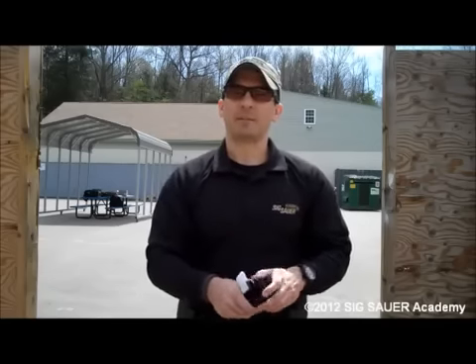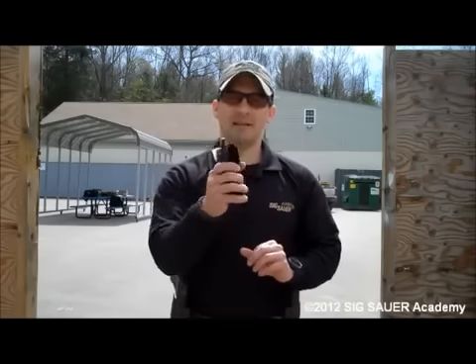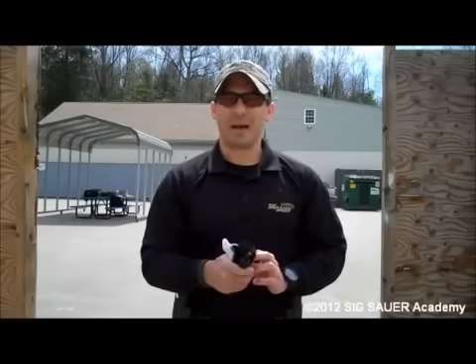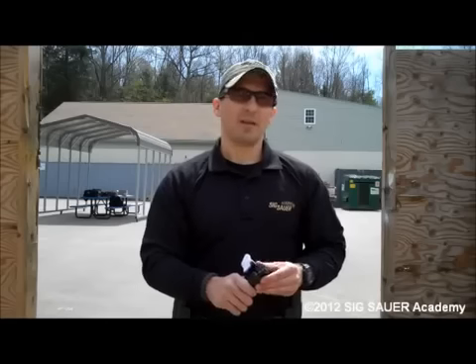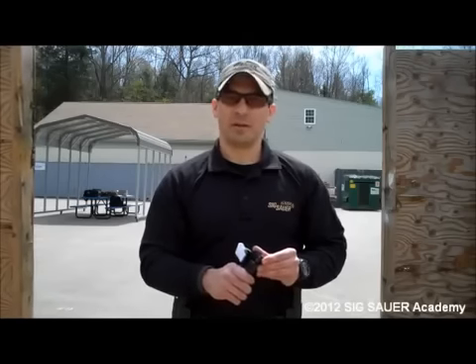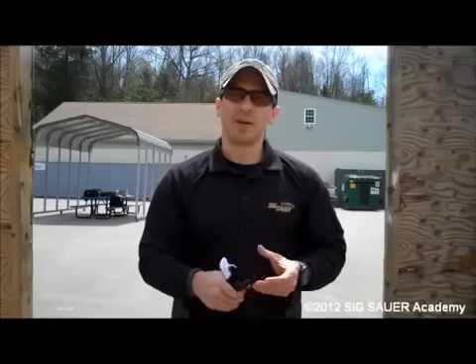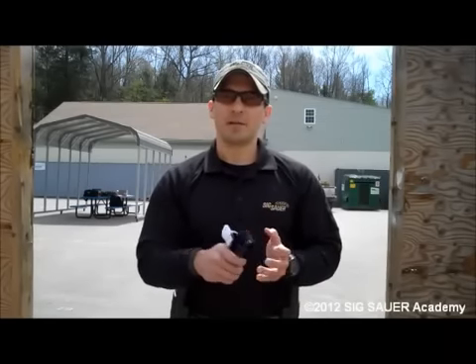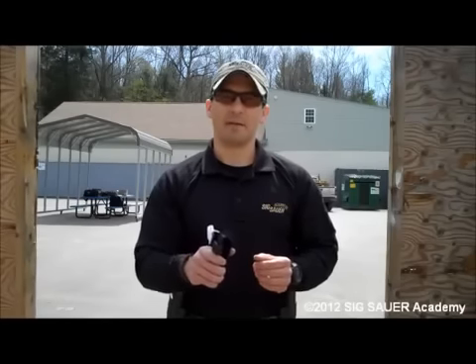That's your staging. You want to make sure the tourniquet is easily accessible on your gear and fast to get on your body. The big thing with a tourniquet is practice, practice, practice. We practice with our weapons — we need to practice with our medical kit, because survival is ultimately the goal here. For more information on these critical life-saving skills and many others, contact us about our Bullets and Bandages course here at Sig Sauer Academy. And just remember, because the gunfight might be over, the fight for your life might just be starting.